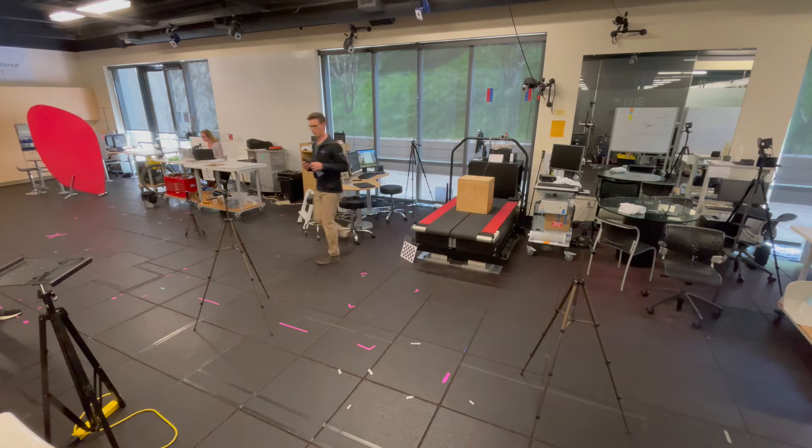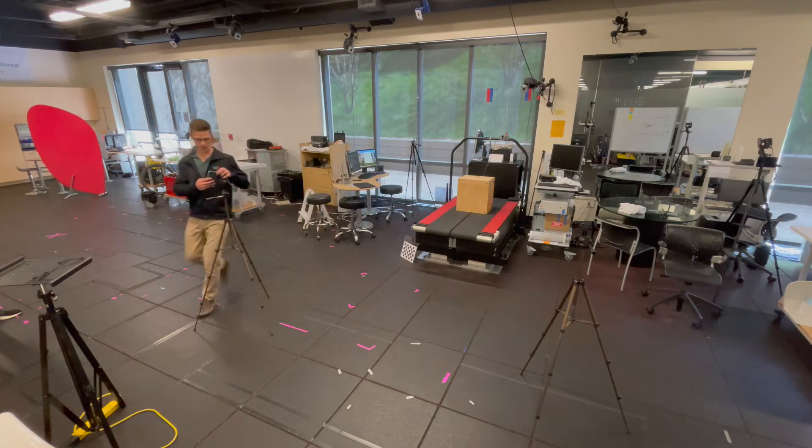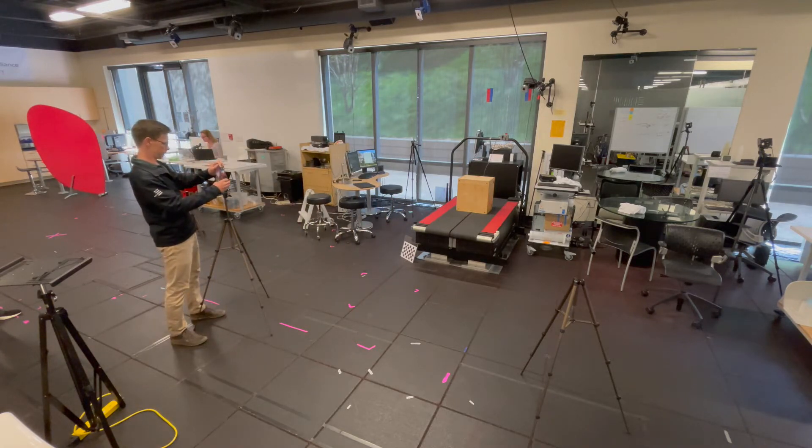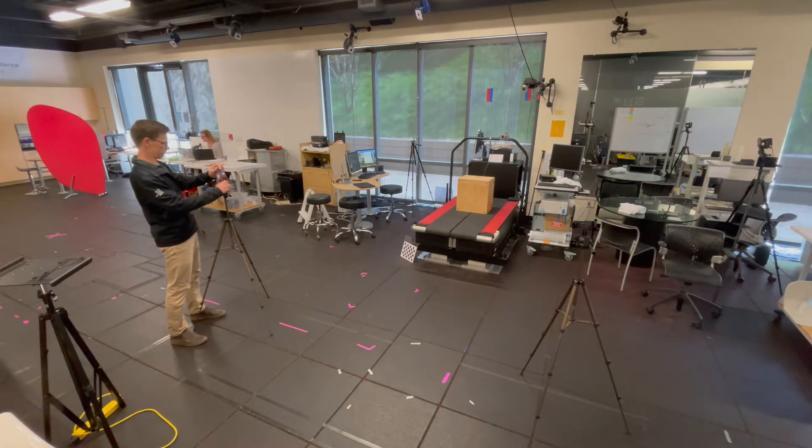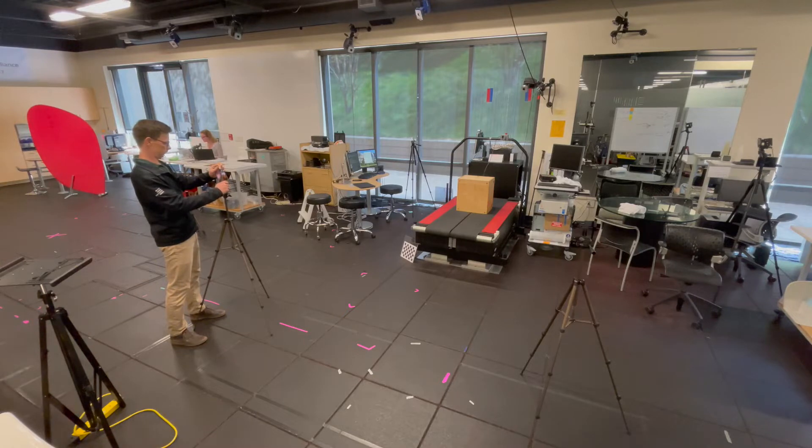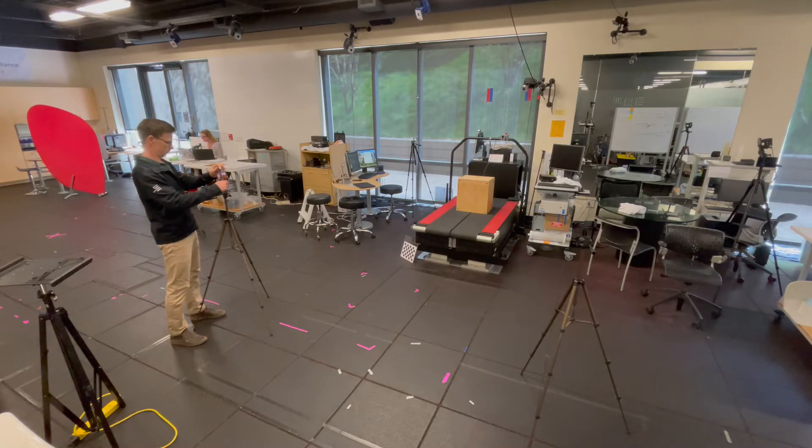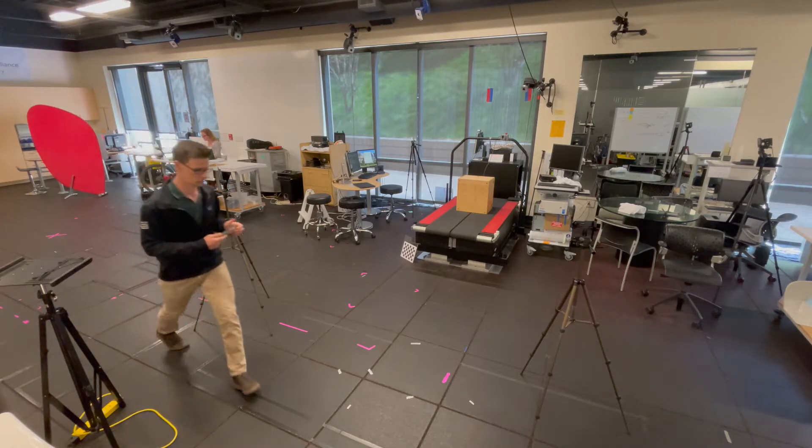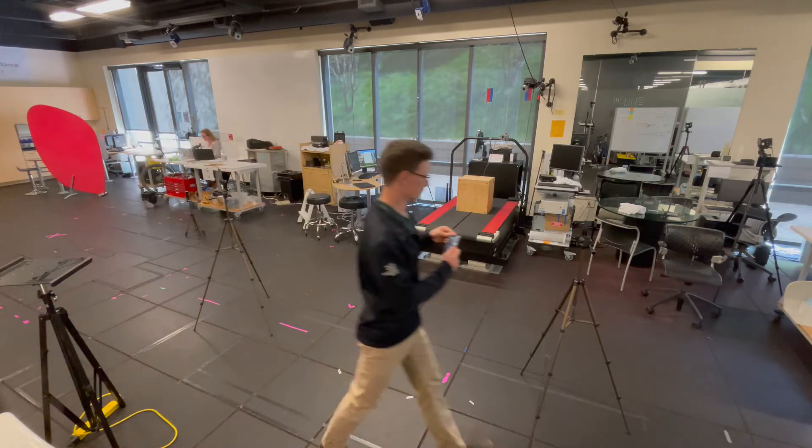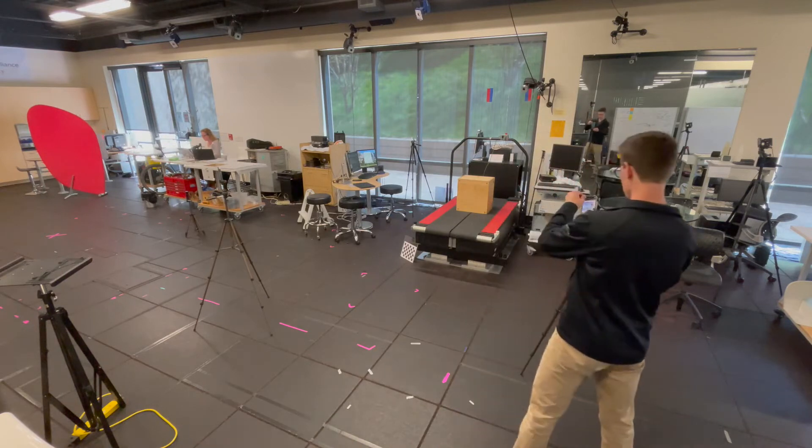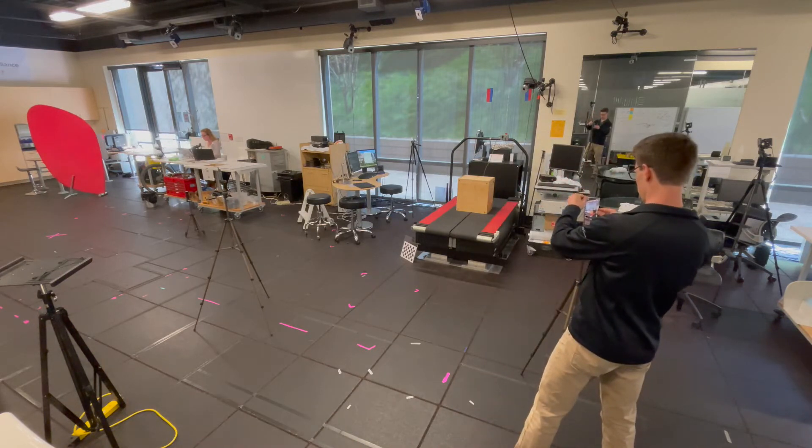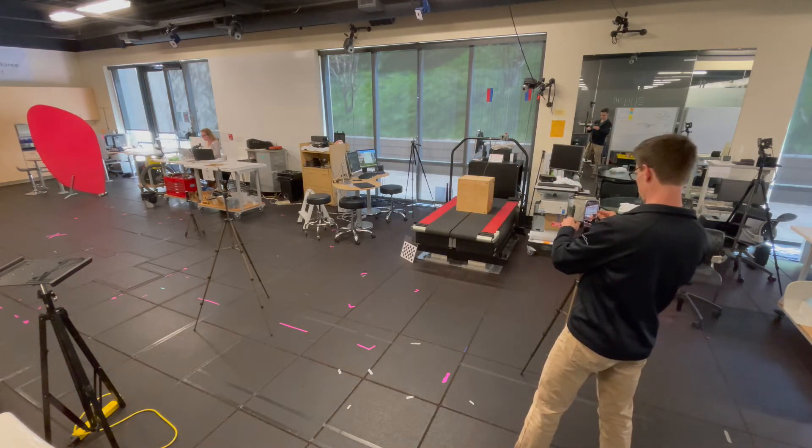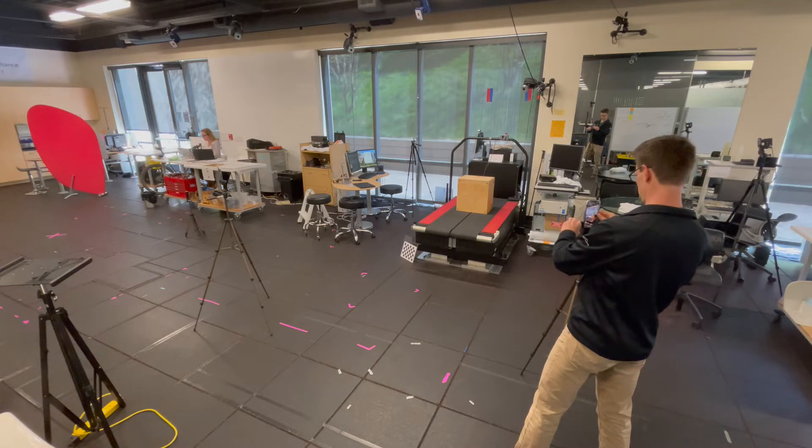Once this is complete, you can mount your devices on tripods around the treadmill. In this case, we mount our cameras at 30 to 45 degrees from the line facing out the back of the treadmill. Depending on if the participant is forward or backward facing, you may need to add additional cameras.